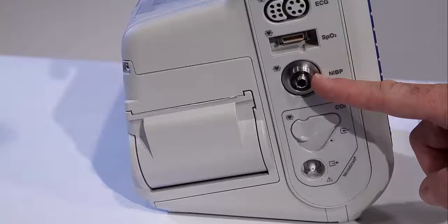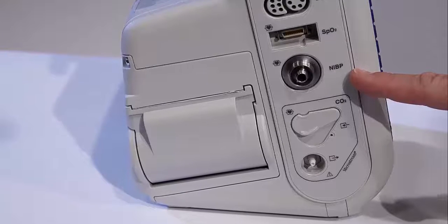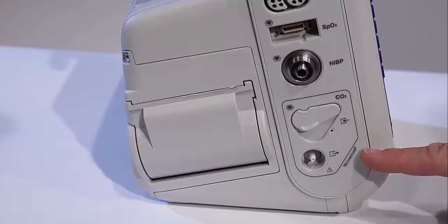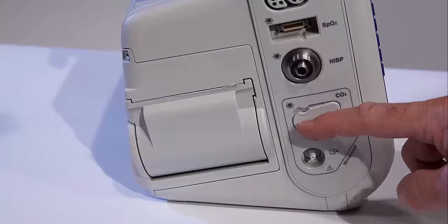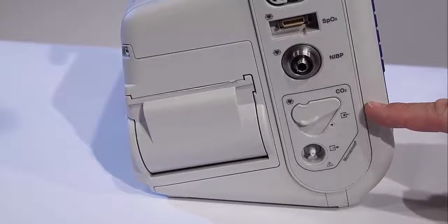The single and dual lumen hose capabilities help improve motion tolerance in the SureBP and SmartCuff features, which we'll talk about later. For ETCO2 or capnography, Propaq utilizes Oridion Microstream sidestream technology, which can be used on both intubated and non-intubated patients.